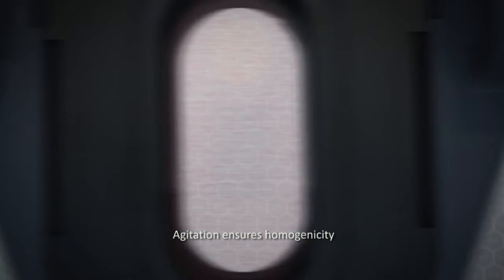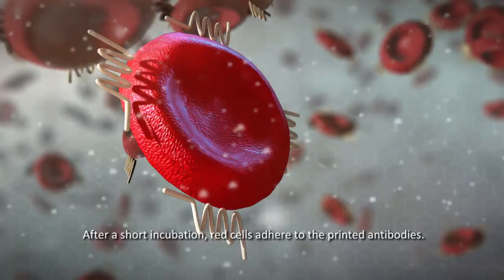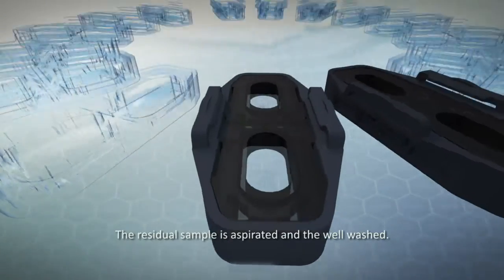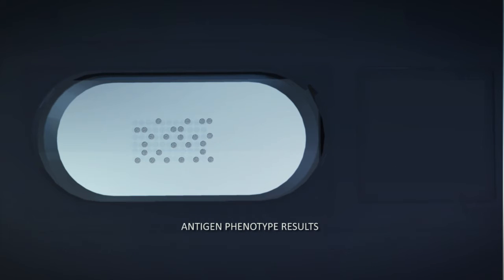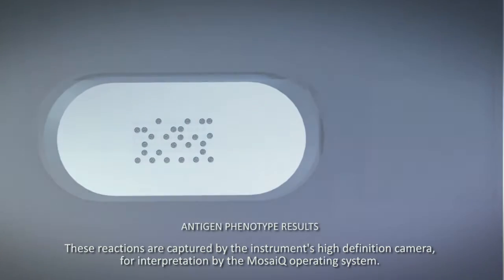Agitation ensures homogeneity. After a short incubation, red cells adhere to the printed antibodies. The residual sample is aspirated and the well washed. Where the antigen is present on the red cell, specific binding has occurred to the relevant antibody. These reactions are captured by the instrument's high-definition camera for interpretation by the MosaiQ operating system.